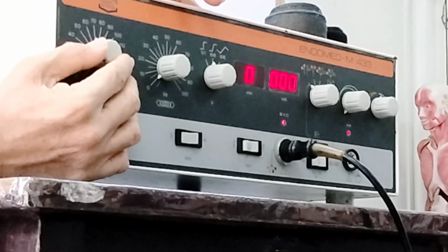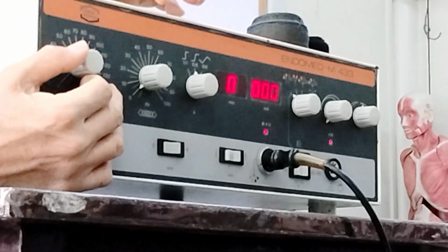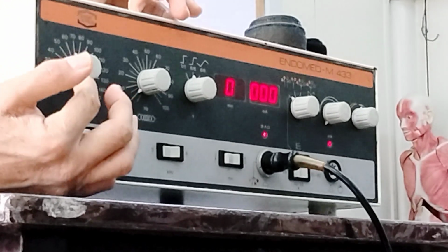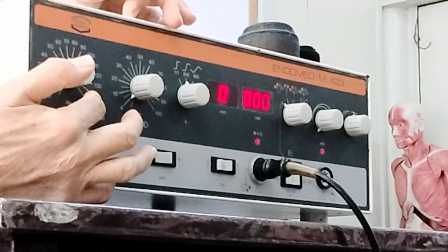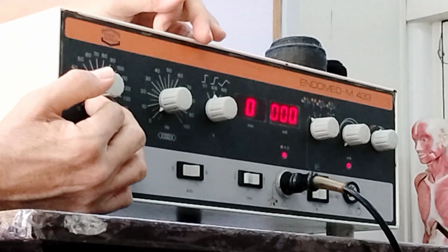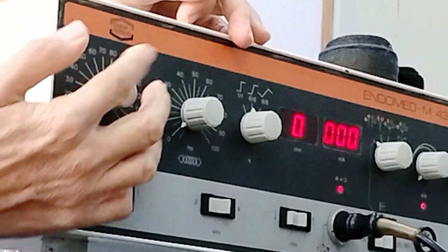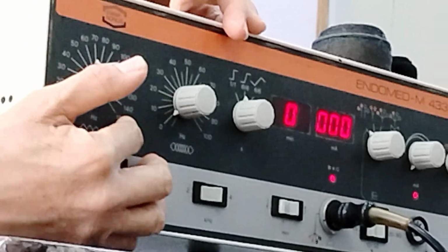So now, as I already have mentioned, we can select the values. There's AMF, or set the values in AMF based on the stages of lesion. So, like here, you have values from 0 to 150, right? So we can divide this into 3: from 1 to 50, then another range is 51 to 100, and another range is 101 to 150.